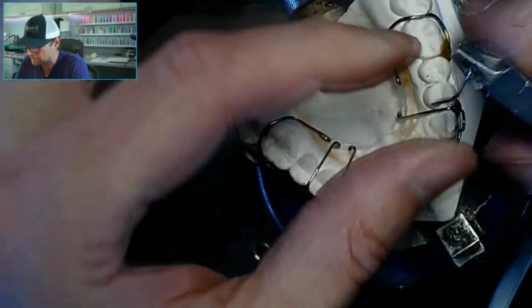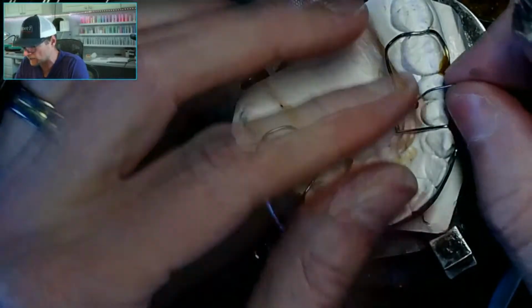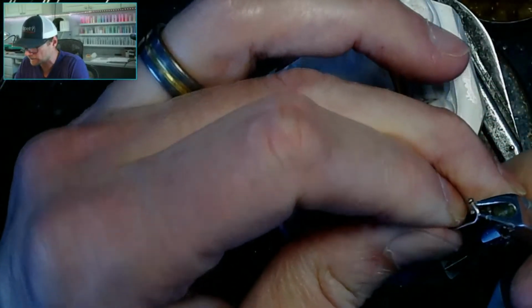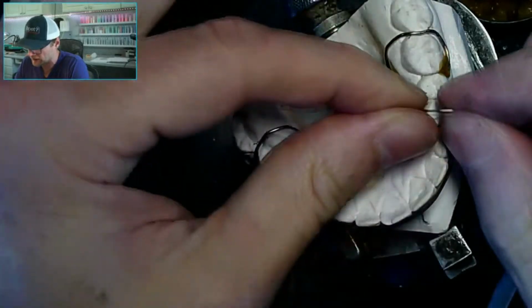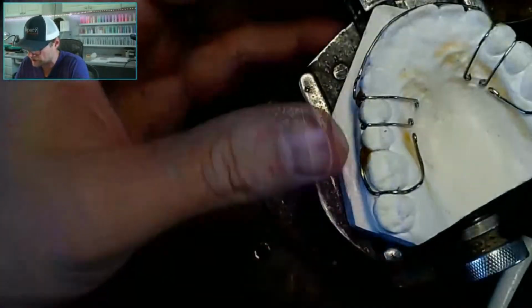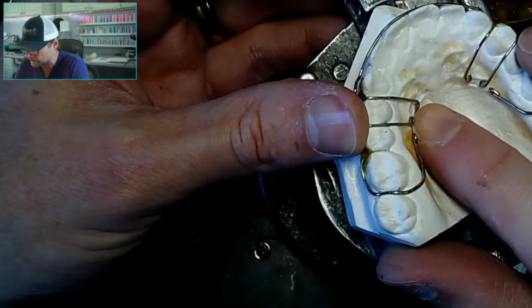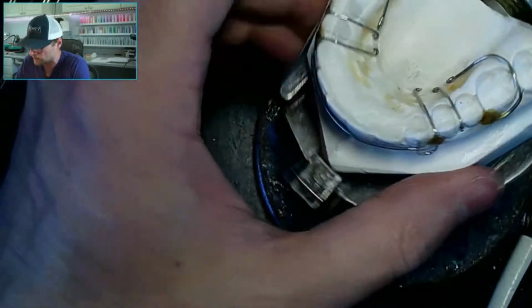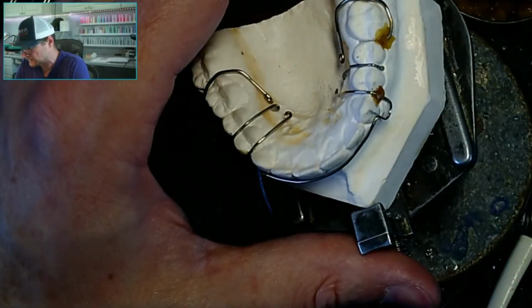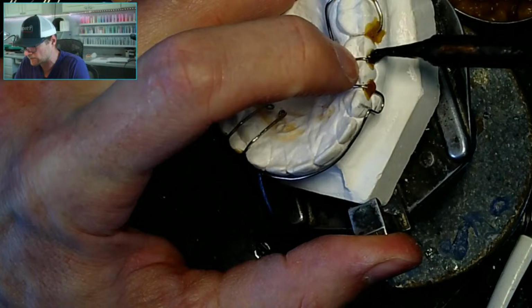But you can see, I'm already an hour into this, right? But I'm also talking and showing things, and of course I talked for a long time before I even started. But maybe 30 minutes for the wires, and that's just to make sure that they're exactly where the examiners would want them.